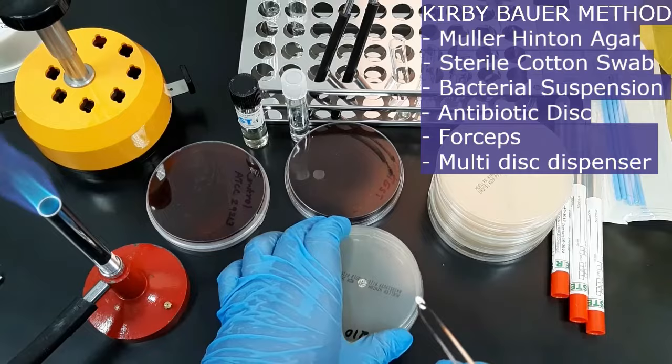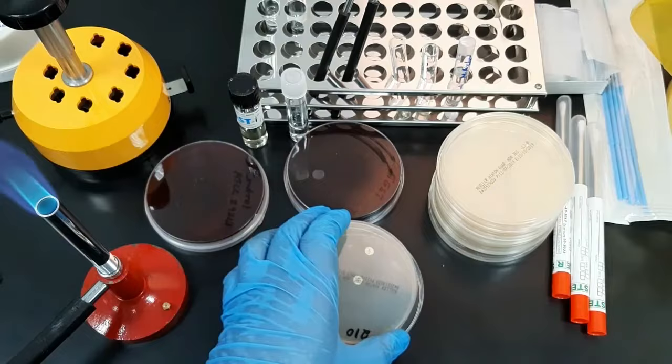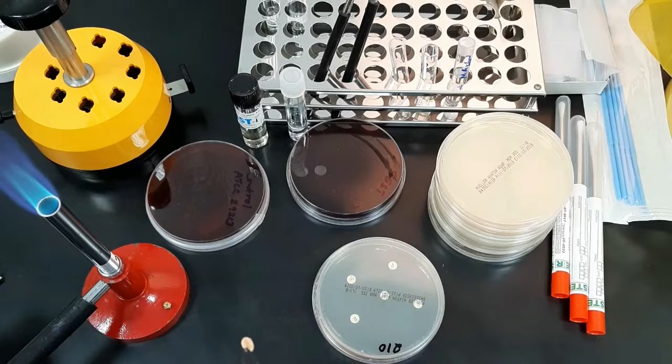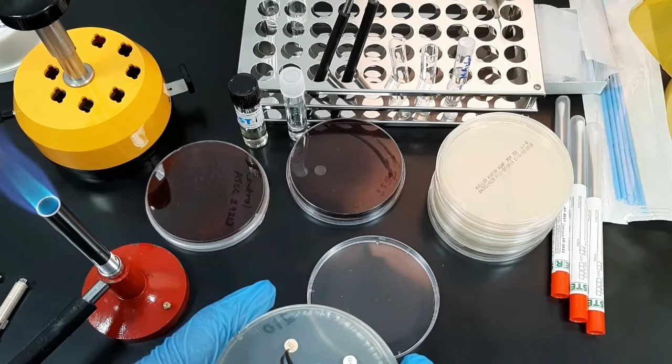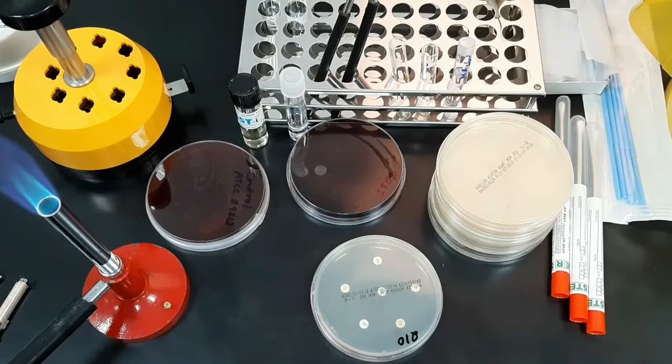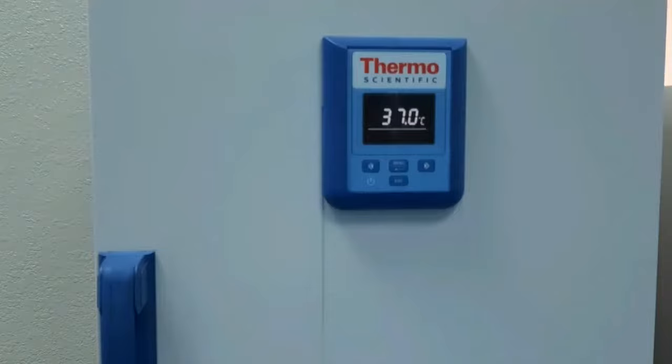Each disc should be slightly pressed down to ensure good contact with the agar. Discs should not be placed too close together — keep at least 25 mm distance from disc to disc. A maximum of 6 discs should be applied on a 90 mm plate. Close the plate lid and incubate at 37 degrees Celsius in an inverted position overnight.